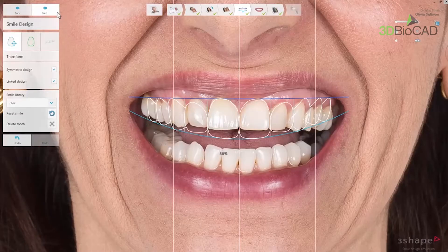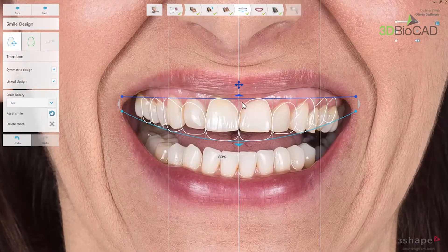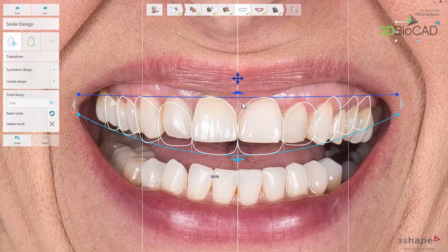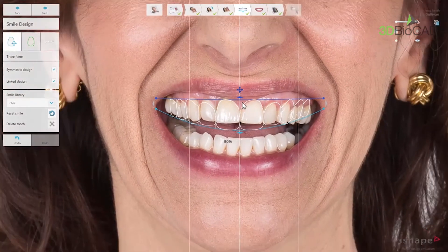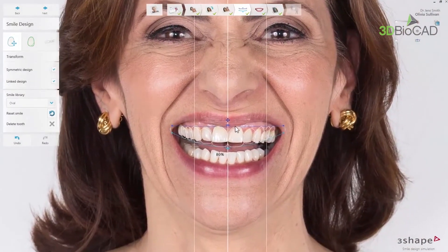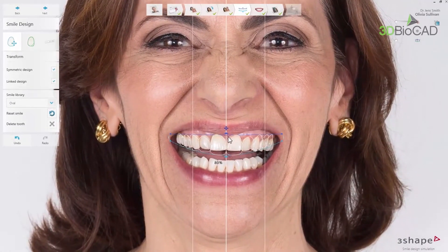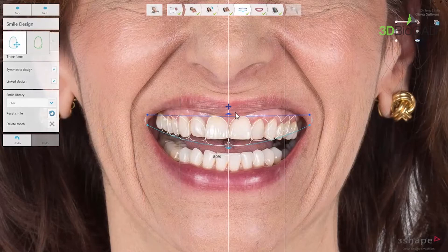In the next step, you do your smile design for the patient. The user interface consists of a central window displaying the patient's photo with suggested teeth design and smile frame guidelines. The auto placement of the teeth design is guided by the placement of reference points and lines, and the placement can be adjusted. The patient photo can be zoomed in and out using the scroll wheel and moved around by pressing the middle mouse button or the left and right mouse buttons at the same time. To work with the teeth outlines, there are the transform and freeform tools, as well as visibility sliders.